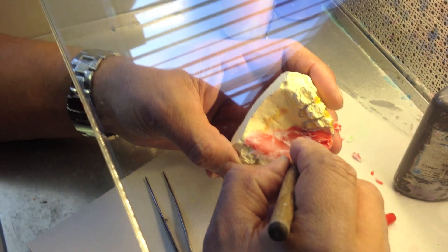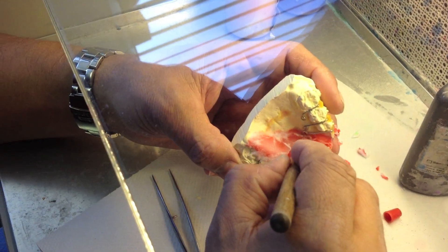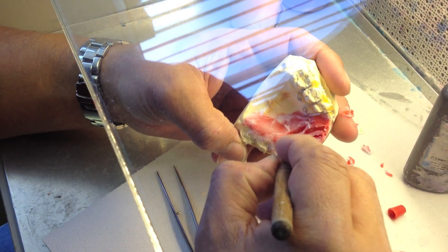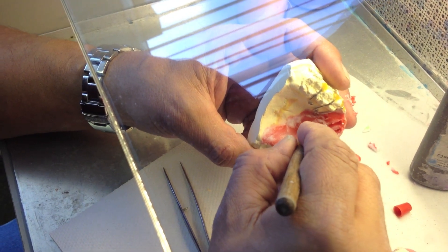You make the same pattern on every mouth, but you've got to change it because every mouth is different. If you try to do the same number of stripes — no, just whatever fits.